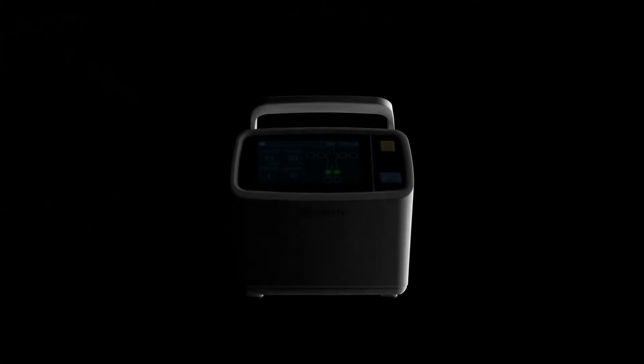Hi, welcome to Biomedical Engineers TV. In this video we will look into sequential compression devices or intermittent pneumatic compression devices. Let's start the video by looking into the beginning of sequential compression devices.